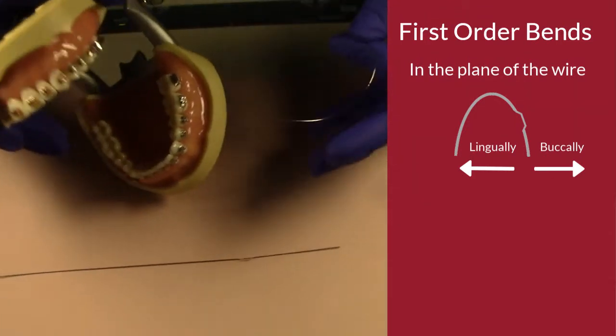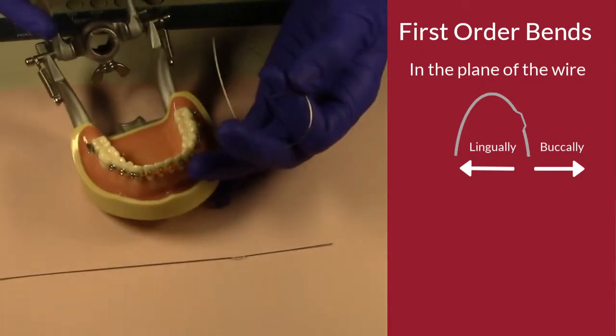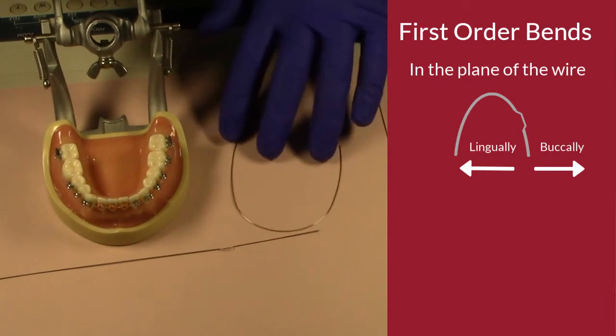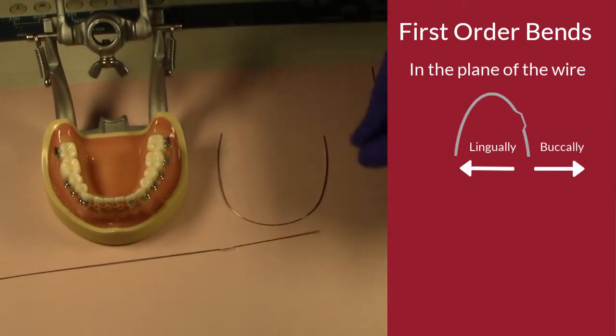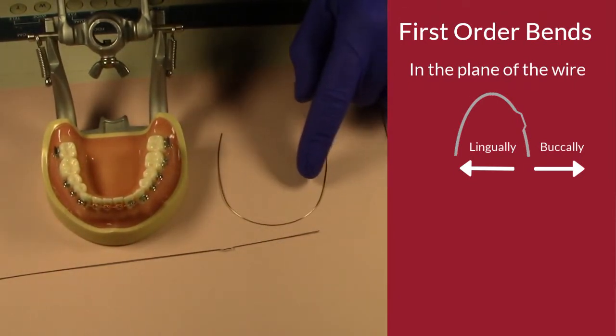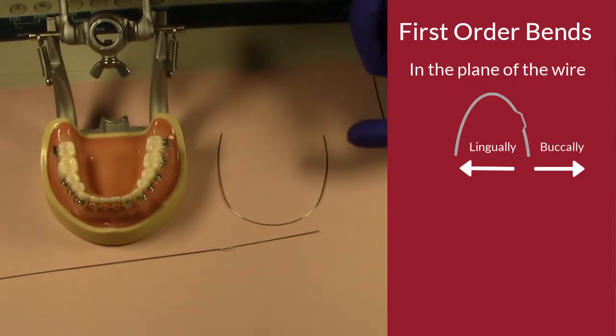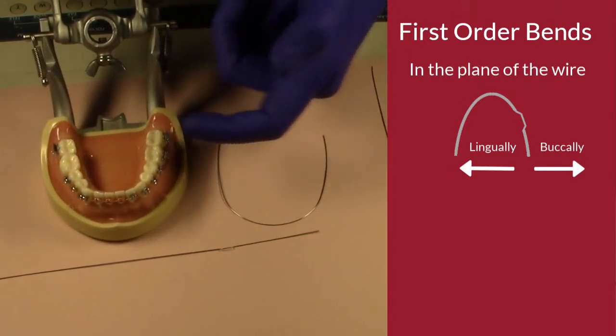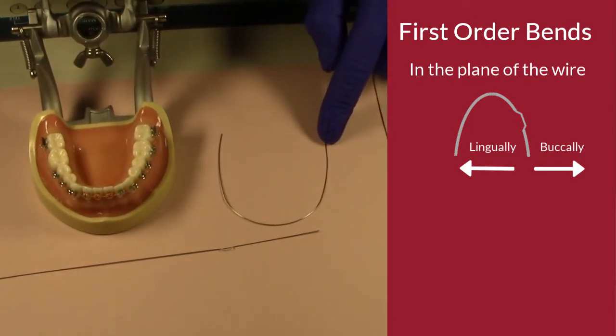So now when we are looking to make a bend, let's say we're going to do a lingual bend. A lingual bend, again, is going to be placing forces on that tooth to push that tooth toward the tongue, okay? So let's look at that.